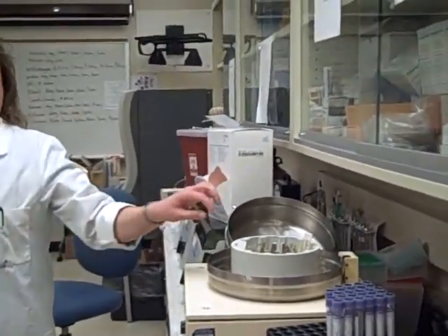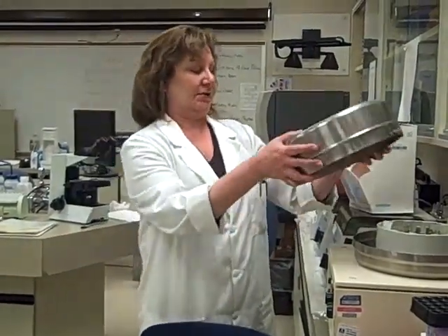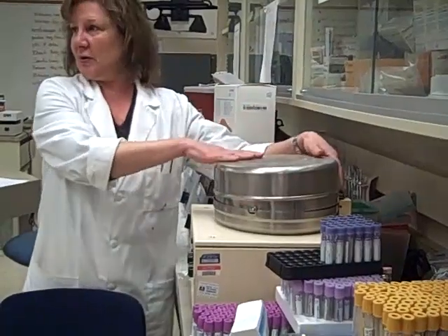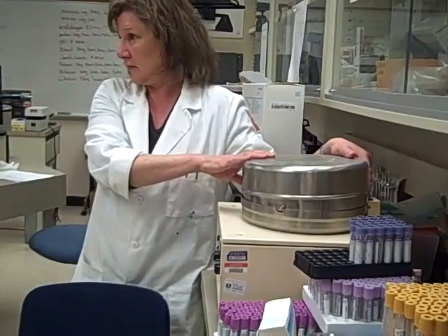The filter paper whisks away the fluid and just leaves the cells on that center portion of the slide. Even if you have a very, very low count, like spinal fluids, where we'll learn that the white count in a healthy individual is normally 0 to 5, you can do a 100-cell differential if you do a cytospin prep. So look at 3 of those today. This just clips down in. You don't have to do a cytospin prep on your fluids today, just the hemocytometer. Look at 3 fluids and we'll go from there.